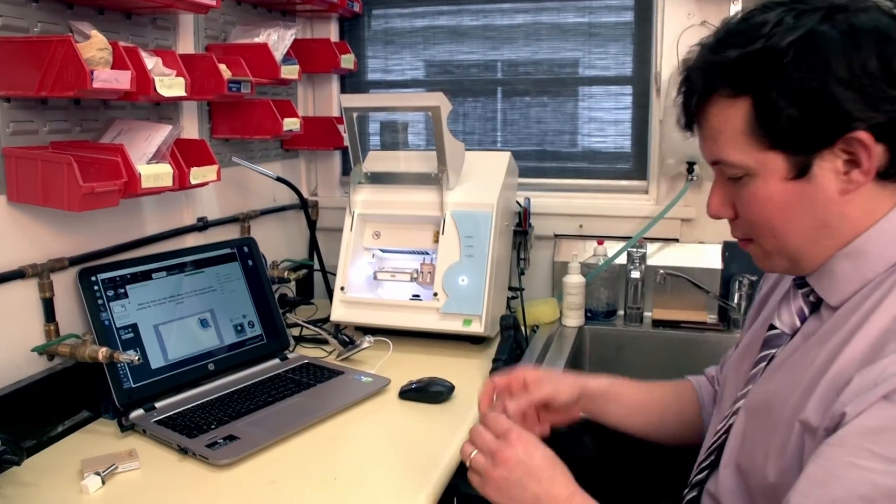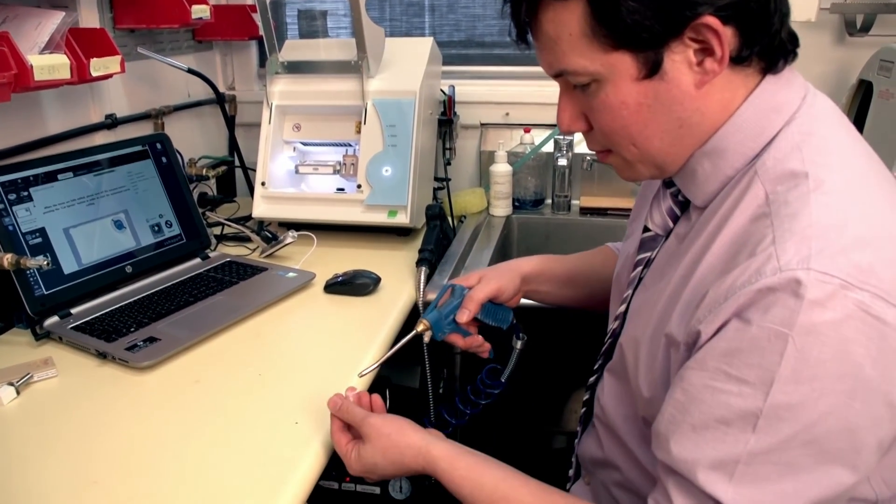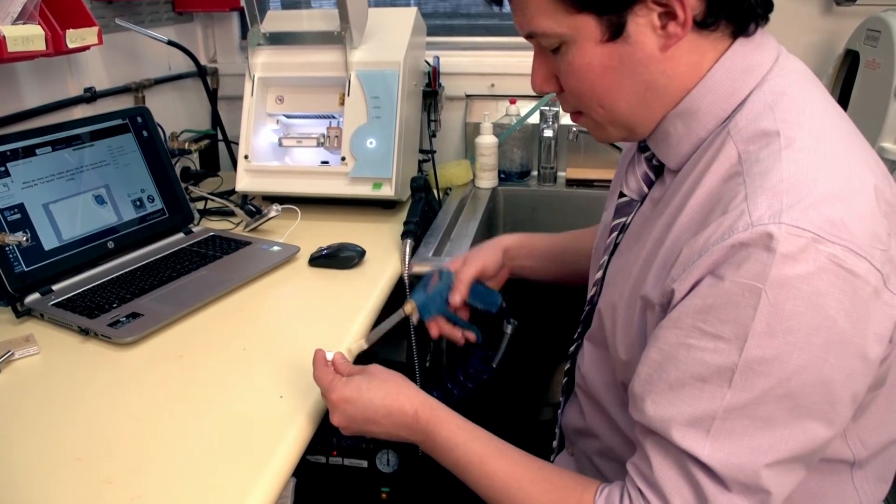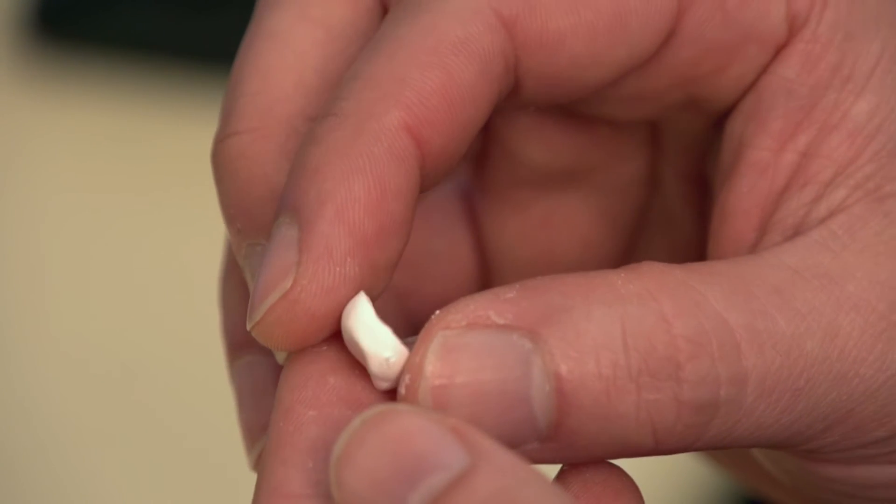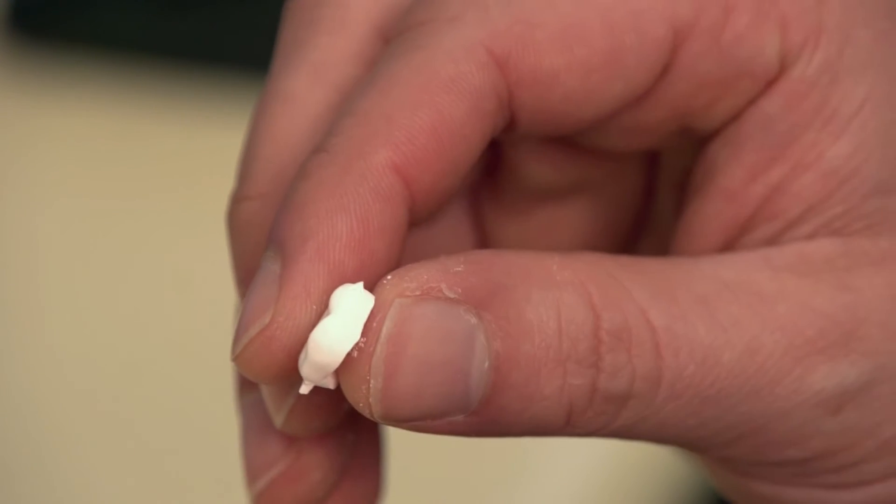When we first implemented the digital workflow to the practice, we actually continued the analogue one as well and went through this process of making multiple restorations for the same patient and directly compared the results we would get using the conventional workflow and the digital workflow. I knew I made the right choice when I couldn't tell the difference between the restorations.